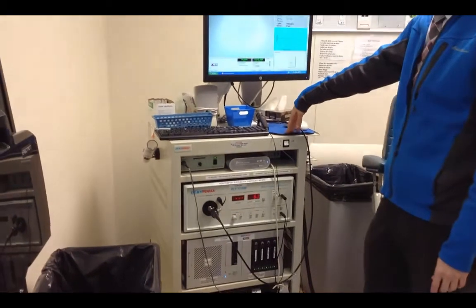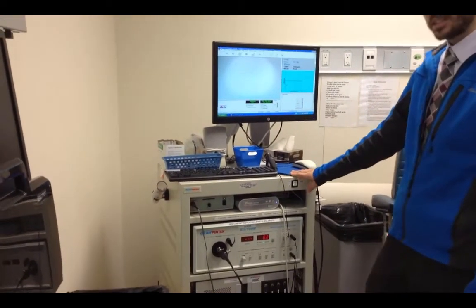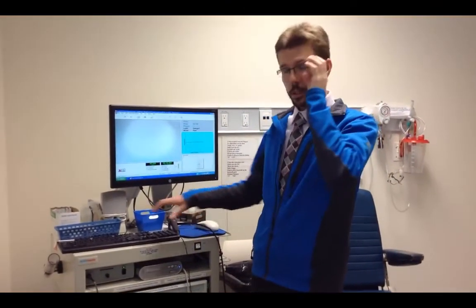This system is about 5 to 10 years old. At the time it was around $60,000. It's not unusual, and if we were to upgrade, certainly we would have newer equipment, but it would be about the same.